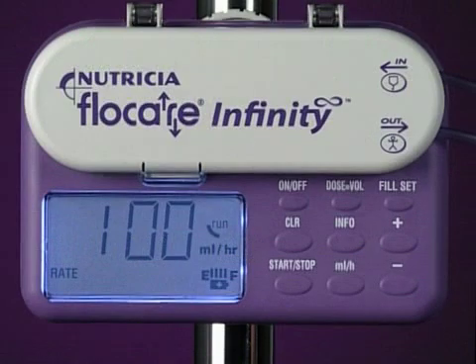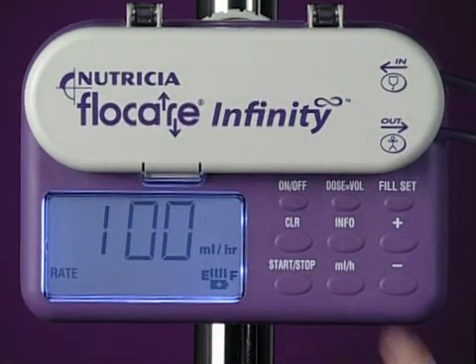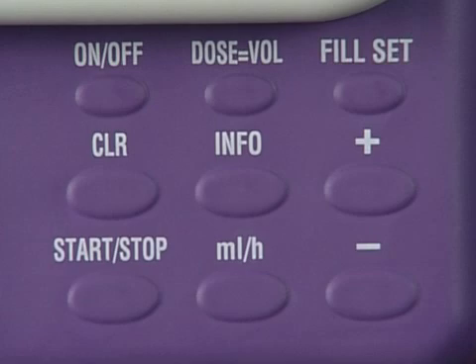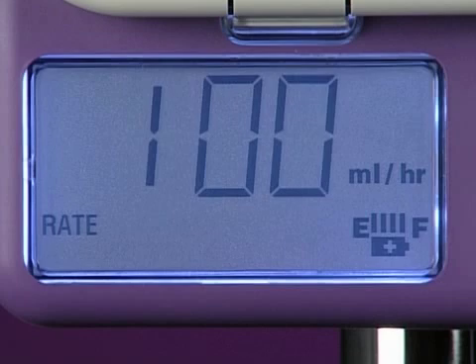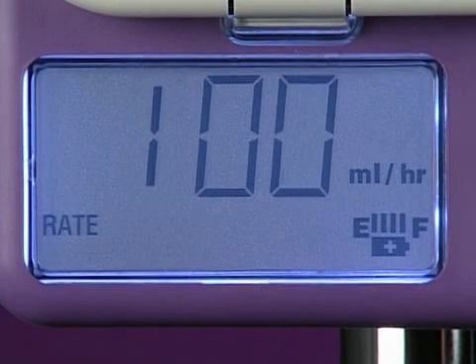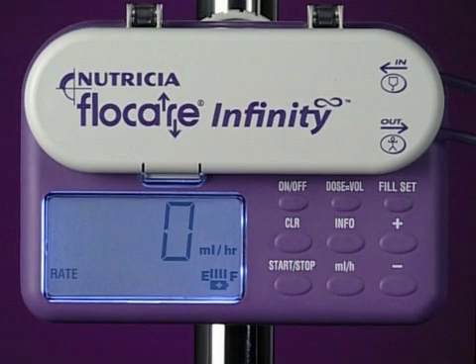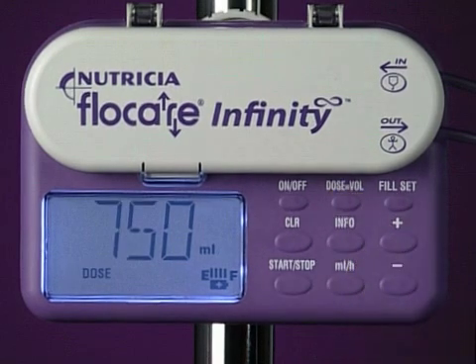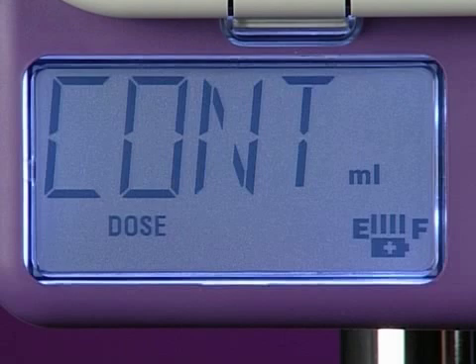It is possible to clear any of the pump settings. Press start stop to place the pump in hold. Press the relevant key, for example, milliliters per hour. Once the flow rate is in the display, promptly press the CLR key to clear it. The display will return to the Flowcare Infinity's default setting. For dose, the default setting is C-O-N-T, meaning no dose is set and a continuous feed will be delivered.